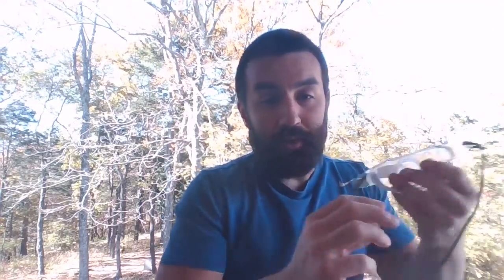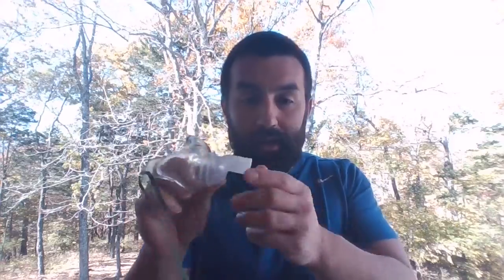Let's talk about one that throws people for a loop. All right, the trach collar. So if I have a trach and I'm wearing this, okay, or maybe I'm even on a T-piece or something, we're going to always use a trach collar for the medication. Not that we couldn't rig this up through a T-piece, like a T-suction or anything like that. We usually switch them over and do aerosols through the trach collar itself. Once again, making sure you got this thing in the correct position. So the problem with these nebulizers, we got to be very, very diligent about setting our patients upright.